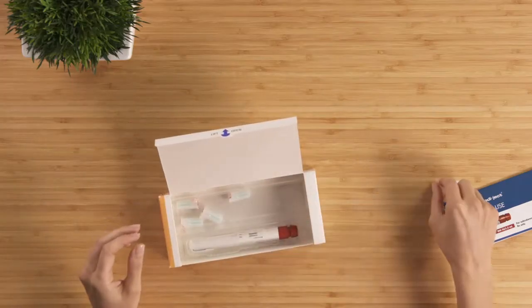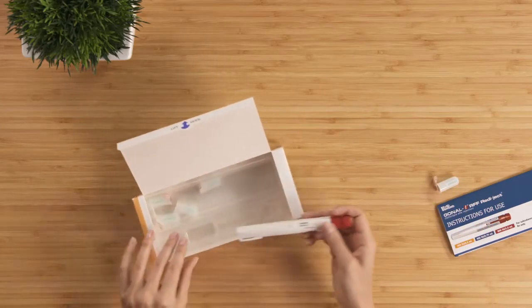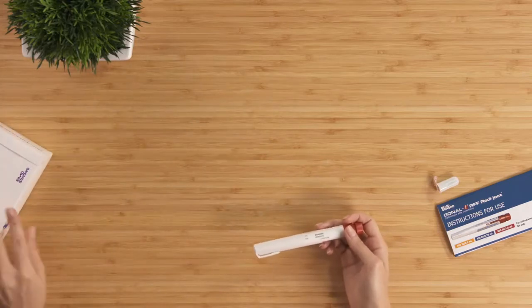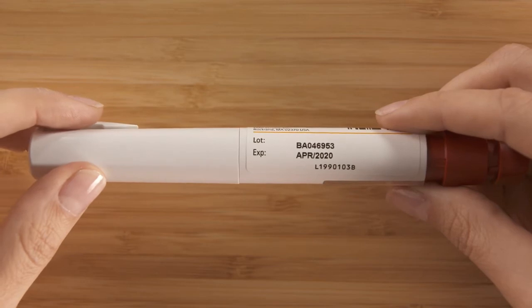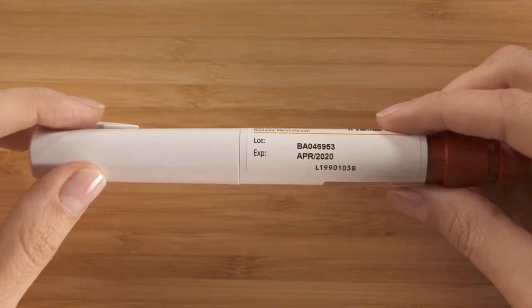Now, remove the pen and a new needle from the carton. Don't shake the pen. Check to make sure you have the right dose and check the expiration date. You should not use an expired pen. If your pen is expired, you will need to get a new one from your doctor or pharmacist.